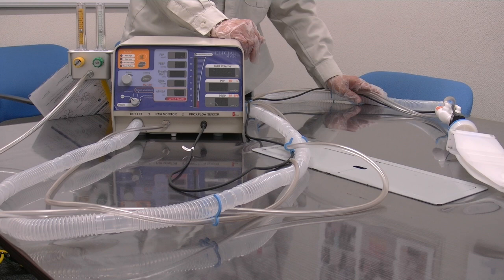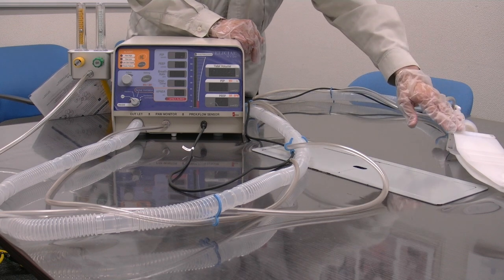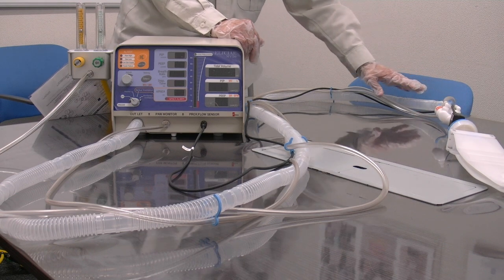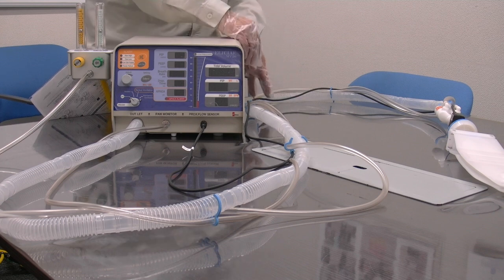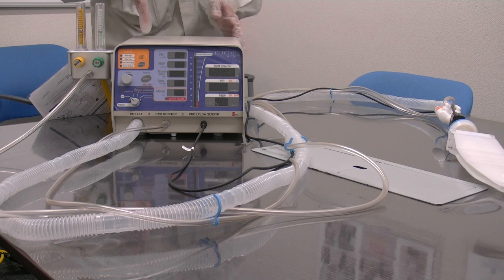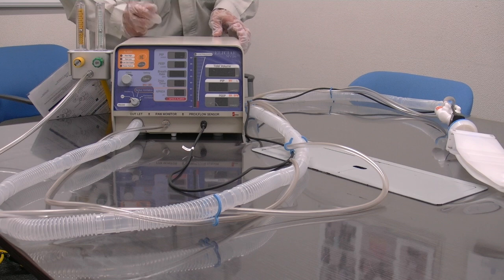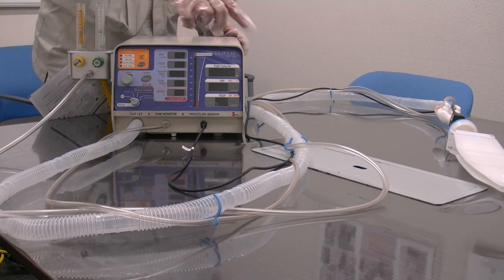When the set pressure is reached and the set inspiration time is complete, the main unit will release its pressure. The air in the patient's lungs will flow naturally back into the breathing circuit, back to the main unit and out of the exhaust port on the rear of the unit. And the breathing tube will again be replenished by the fresh gas from the blender.